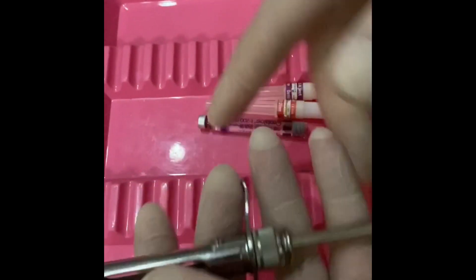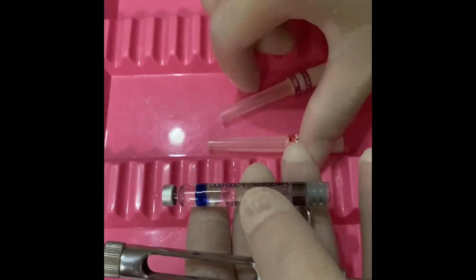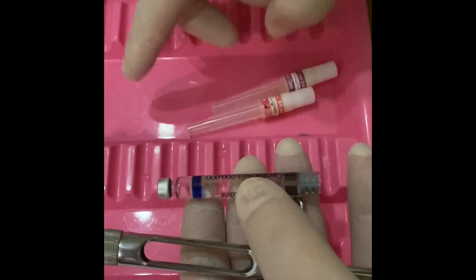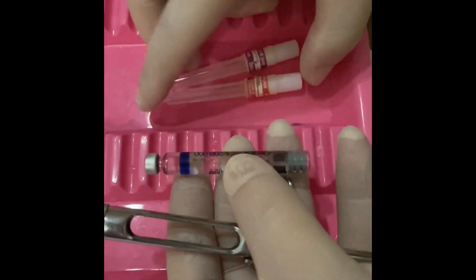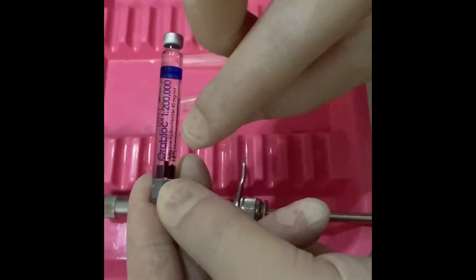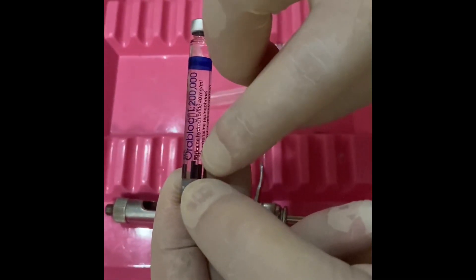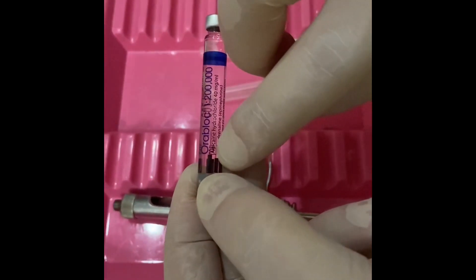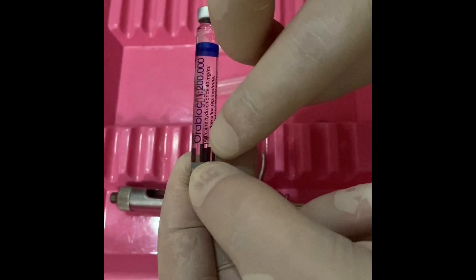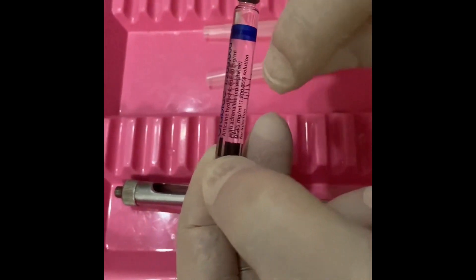For local anesthesia we have a dental syringe, the cartridge, and the needle. On the cartridge we can see the name of the anesthetic solution, its concentration, and the concentration of epinephrine.